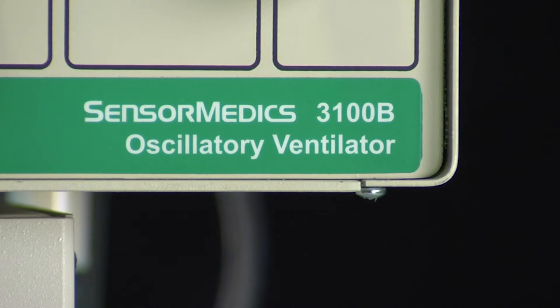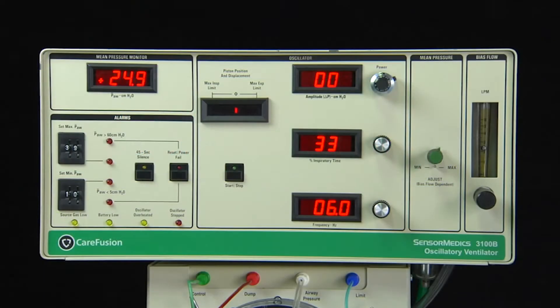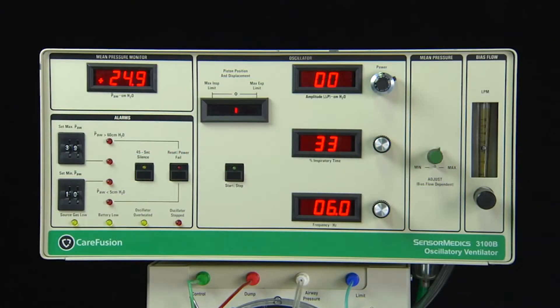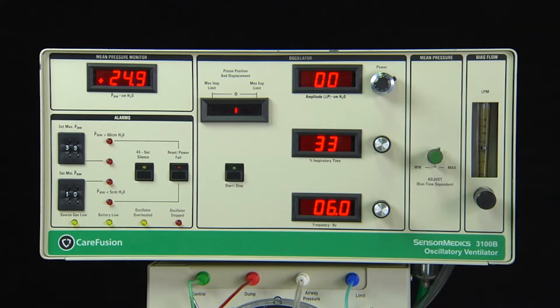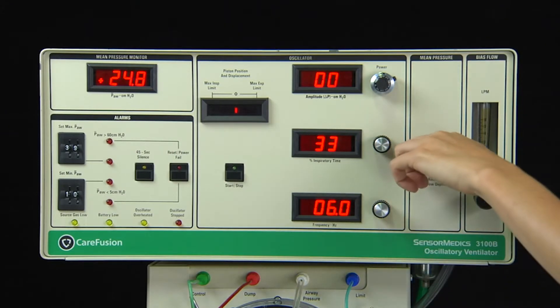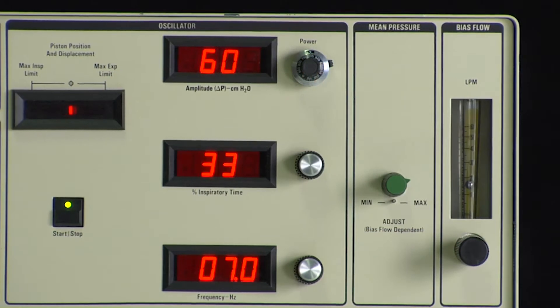Patient management with the 3100B is made easy, as only two of the five controls are routinely used. These are the Mean Airway Pressure and Amplitude, or ΔP.